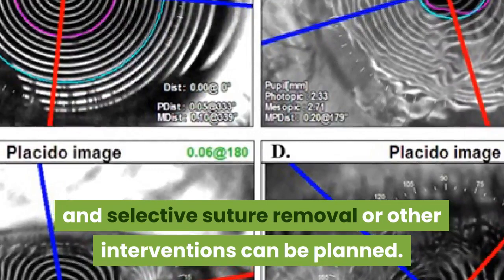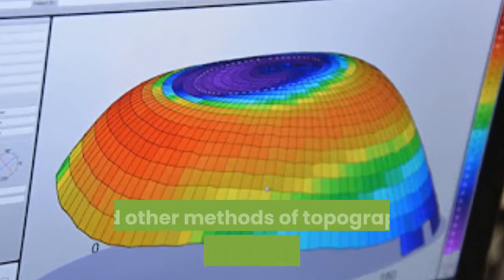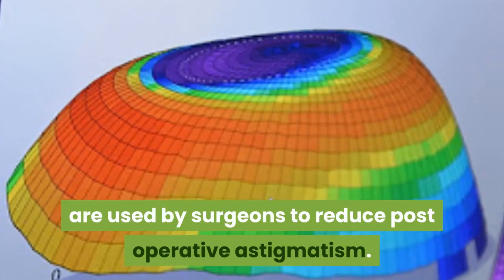Surgical planning in cases with astigmatism: limbal relaxing incisions and other methods of topography-guided incision placement are used by surgeons to reduce post-operative astigmatism.